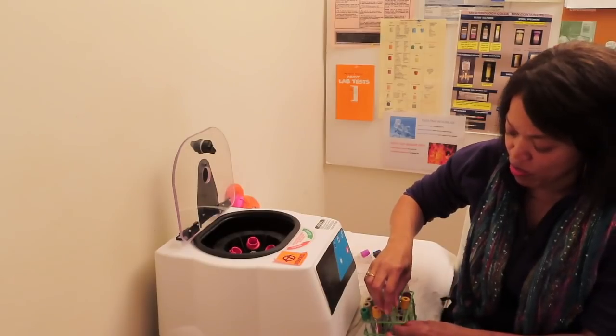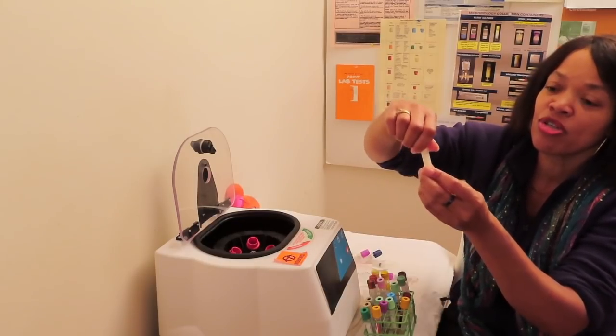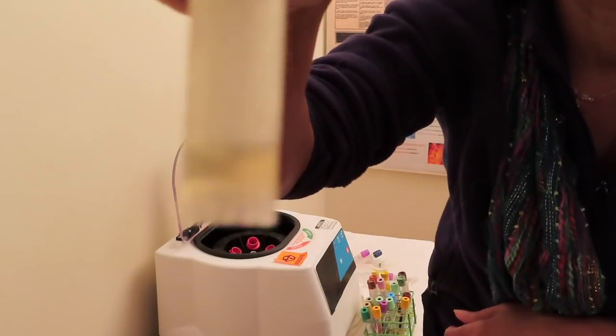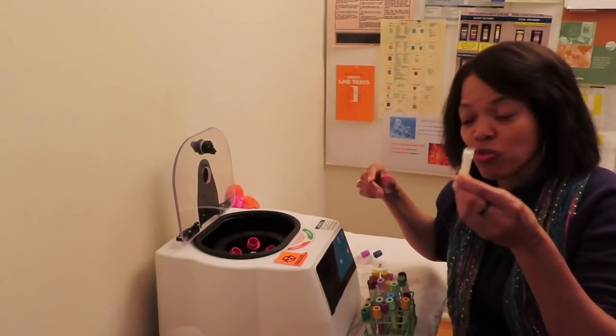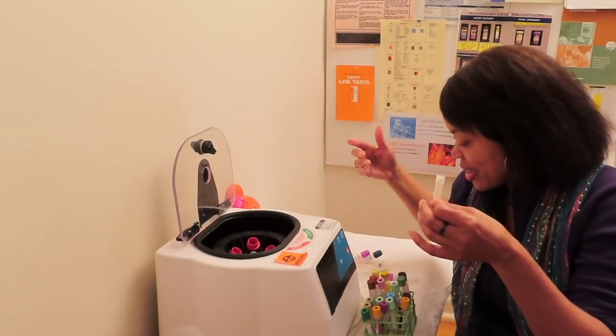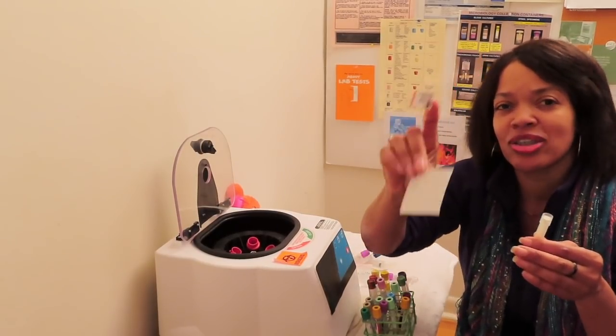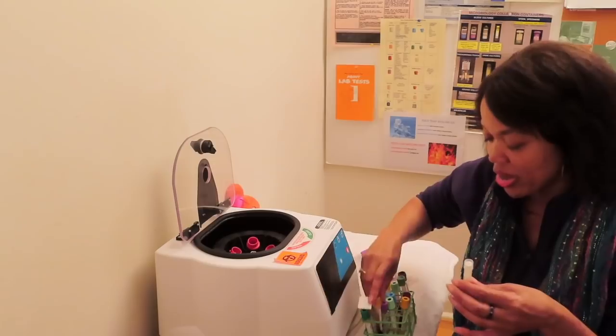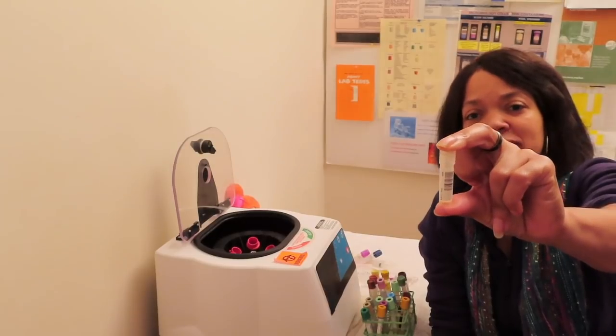So we've got what we need out of that. We place this back in the rack. We get our little transfer device. I'll show you. We only have a little bit in it. But that's what you do. You cover your transfer device, and it's only almost a drop. But if you guys look closely, you can see that I have transferred some serum inside the little transfer tube. And that is how you do that. Of course, with a larger pipette, but the small one works nonetheless, and you get the idea. So once that's done, you can take your little tag-along label, if you have a tag-along, or another label, a reprinted label that's already on your tube. So we just reprint it and put the exact same label on your transfer. And that's it.